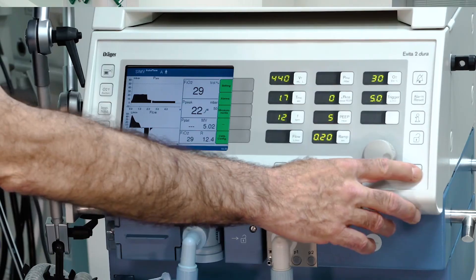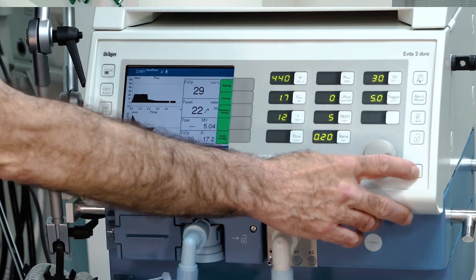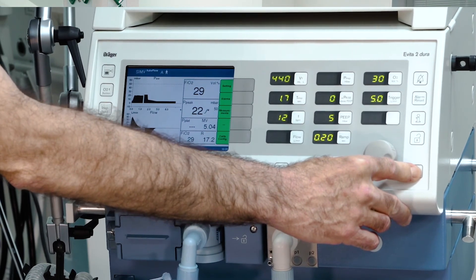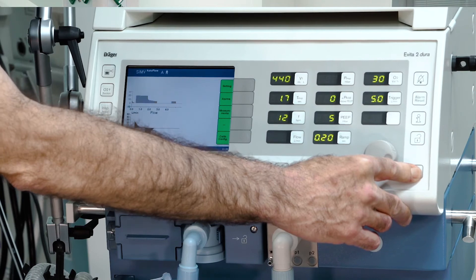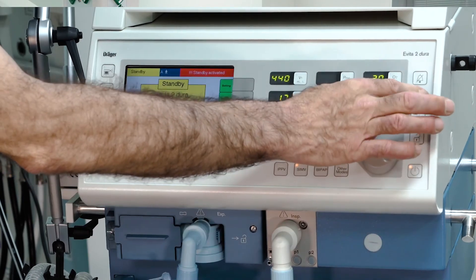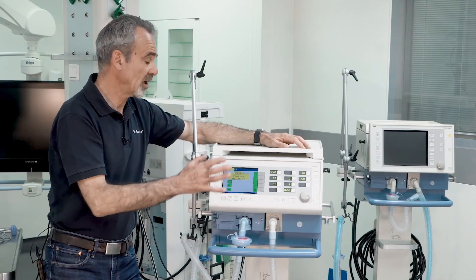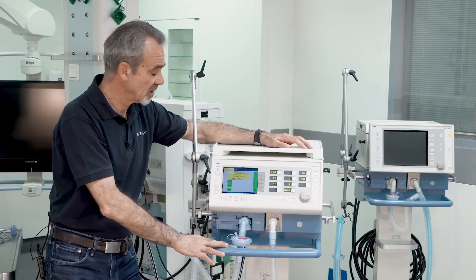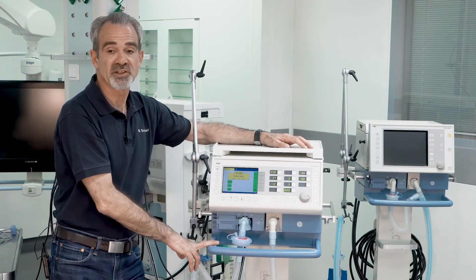To switch off the device, hold this key for more than three seconds and confirm with the alarm reset key. The device then stops ventilation and jumps into standby.